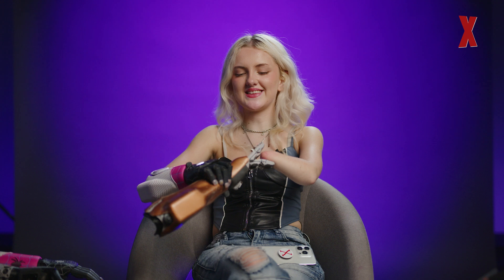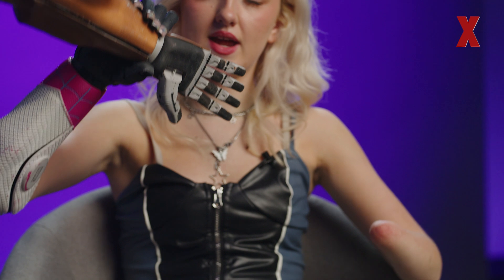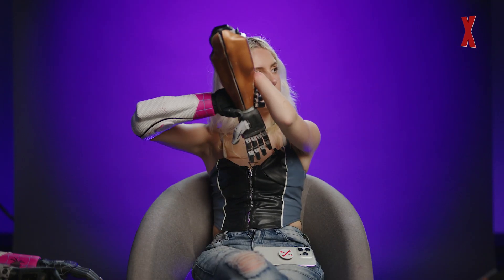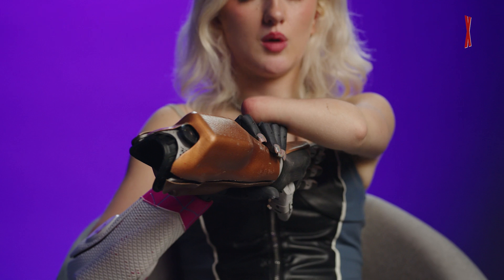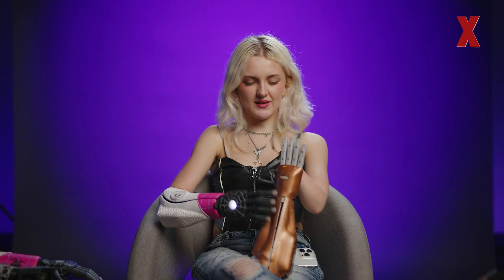The rest of these are from Open Bionics but represent the steps toward becoming the Hero Arm — they're like prototypes that can't be found anywhere else. The idea is the same in the sense that they don't look like a realistic hand. These chunky bits are the battery, and the battery used to be a lot thicker. They're all 3D printed, and you can see more of that 3D printed detail — they're a lot more polished on this side. The button used to be a tiny button in the middle, whereas now it's got a much bigger surface area, which makes it easier.